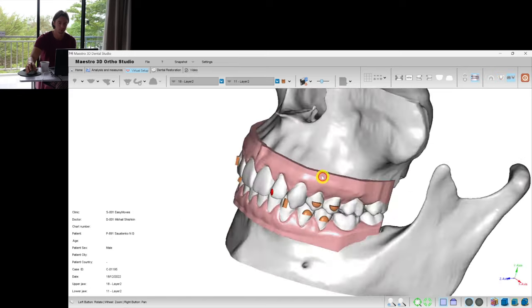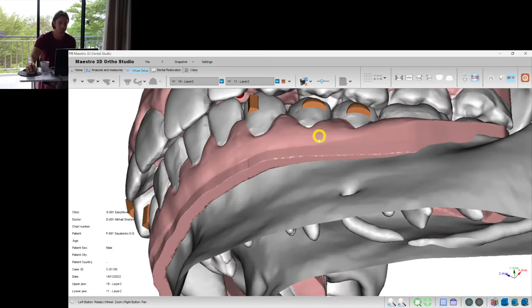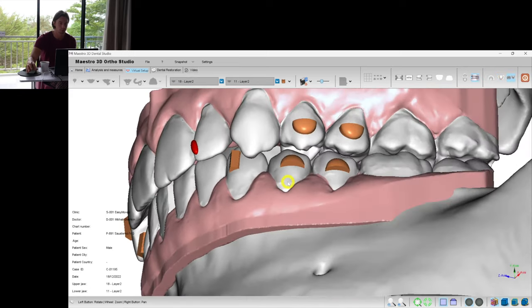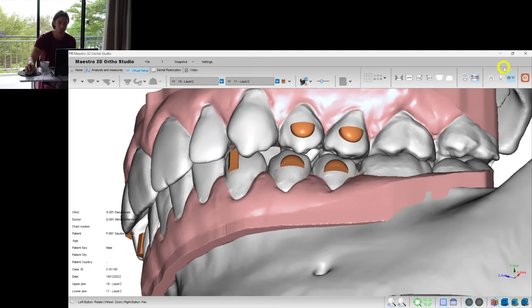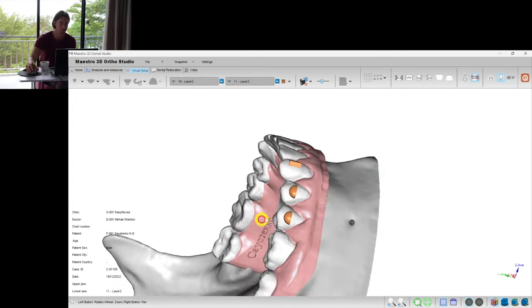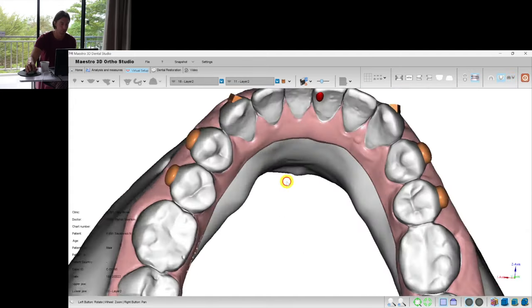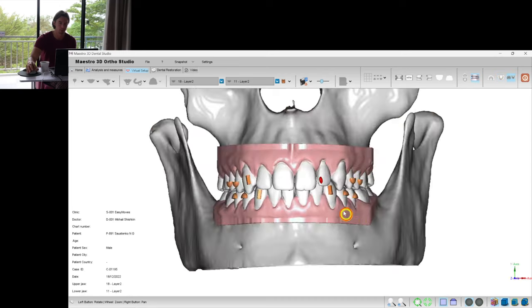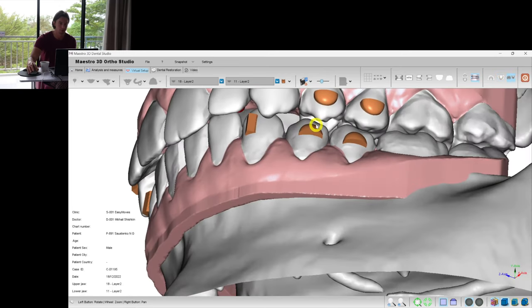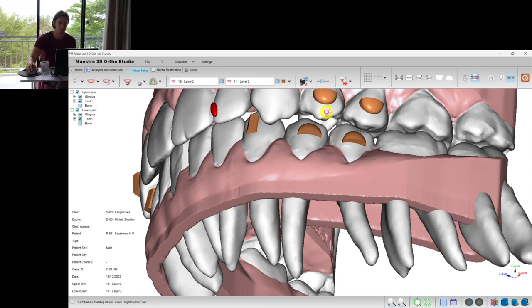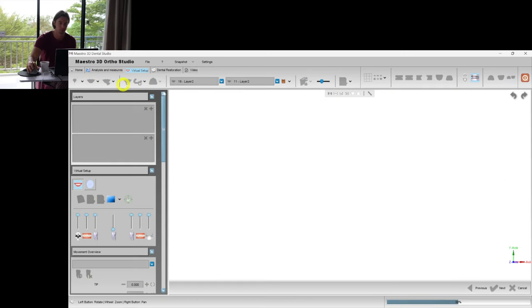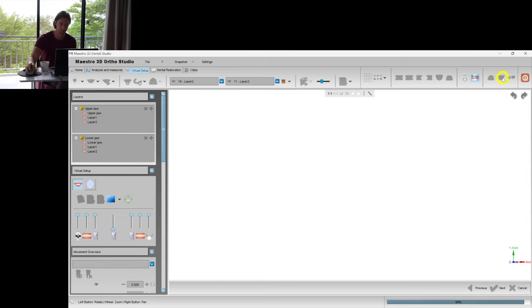Here I see something I want to fix now. I did not move the first premolar here, but I moved its antagonist. So that we will get immediate relapse if we don't adjust the upper and lower teeth. So let's go back to the setup.